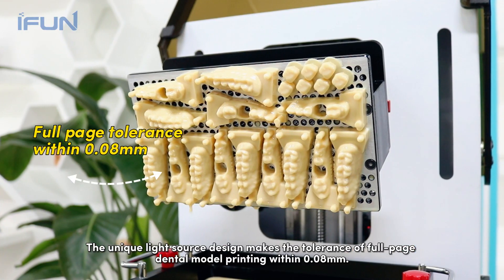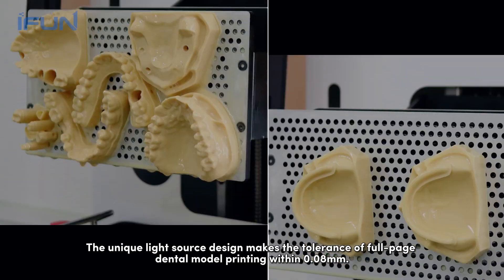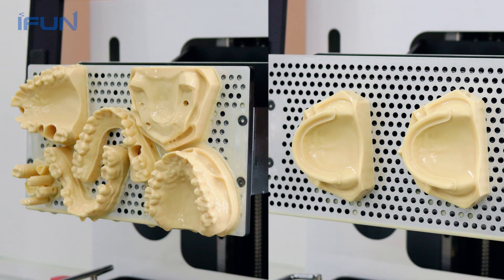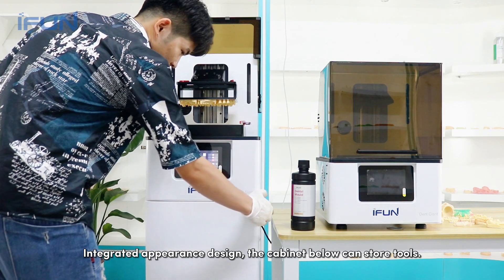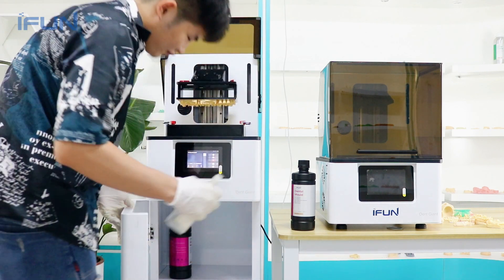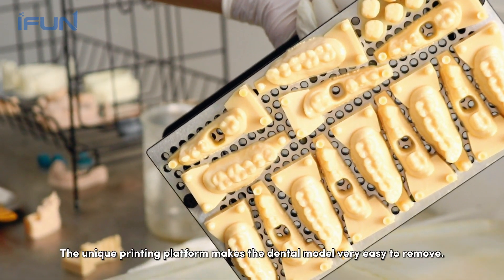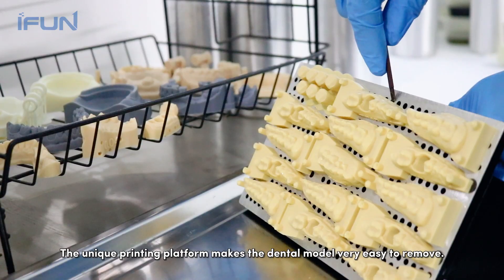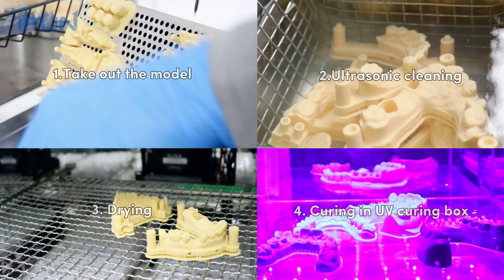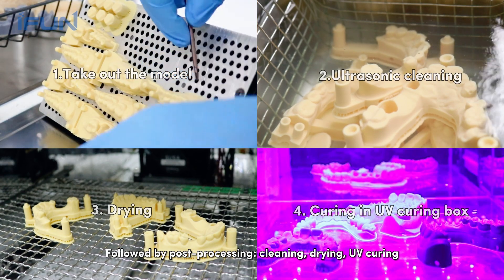The unique light source design keeps the tolerance of full-page dental model printing within 0.08 millimeters. The integrated appearance design includes a cabinet below for storing tools. The unique printing platform makes the dental model very easy to remove, followed by post-processing: cleaning and drying.